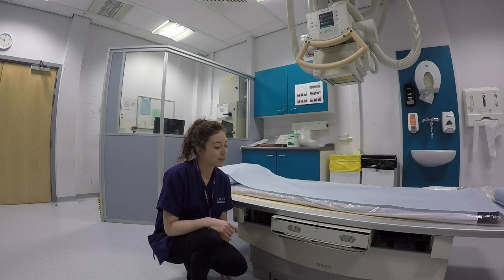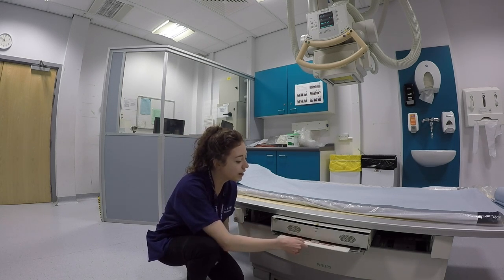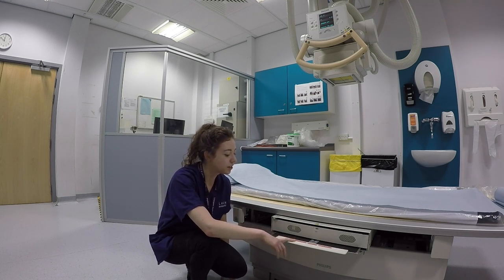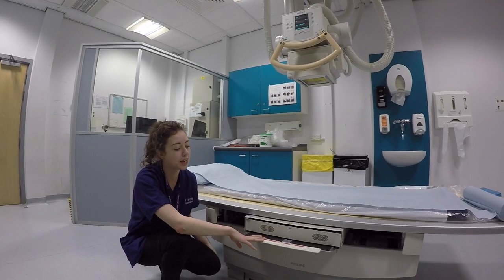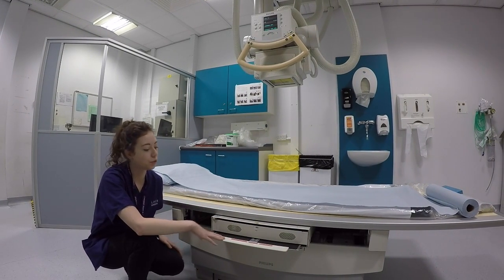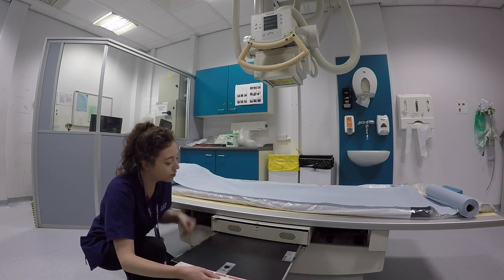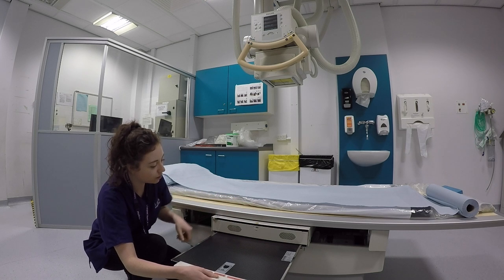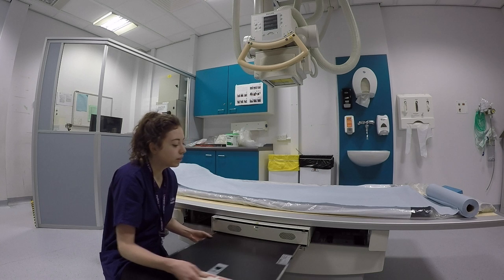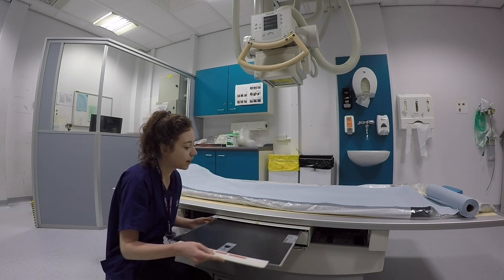Right, so this is the table detector. The grid is found in a little slot underneath, so you just pull it out here. And the colour coded with a little thing on for the distance. So this is a 110 grid, which is used in the table. And there's other ones, there's a 140 for the wall detector, and there's also a 180 that's used for something else. So you just slide that out, and to put it in, you press this button. A little clasp will come out on the side here, so you just need to put it in. Make sure that presses the clasp and slide it in.